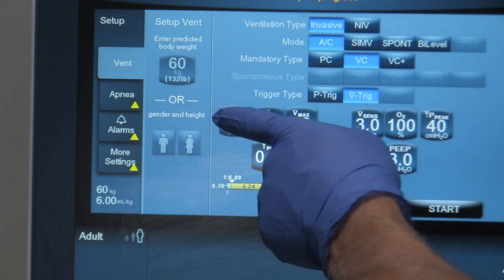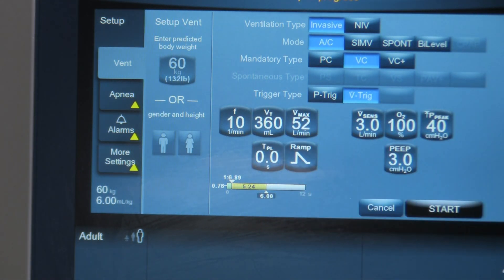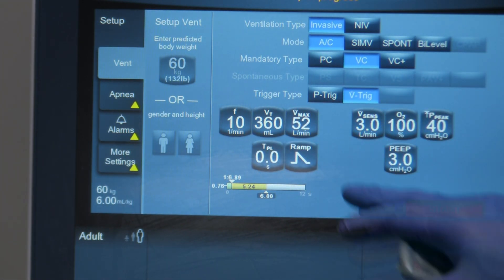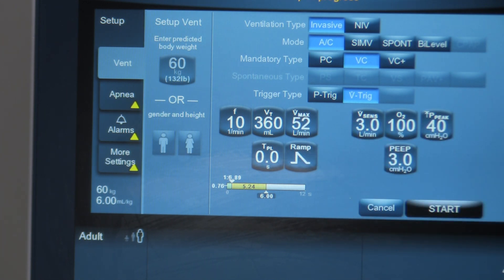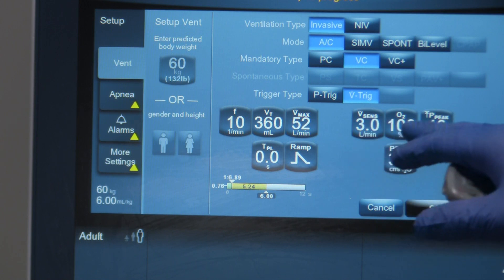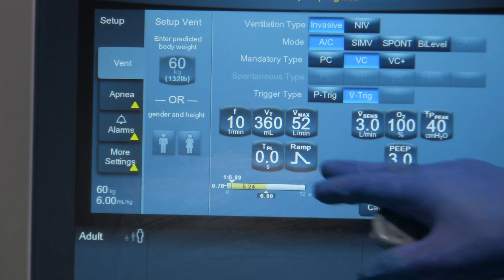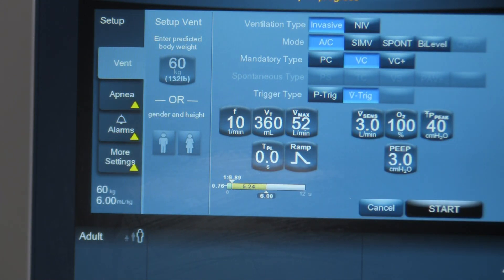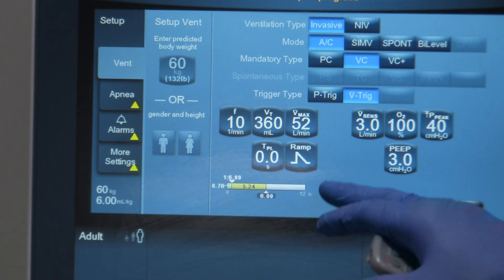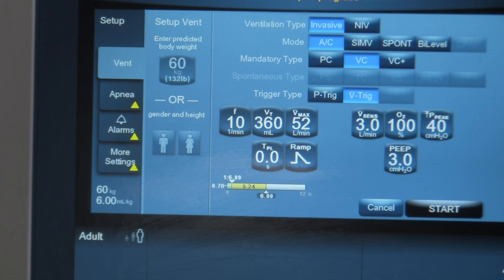The other settings on this level start with respiratory rate and tidal volume. The tidal volume that comes up is based on the ideal body weight programmed into the ventilator. Flow rate is also automatically chosen for defaults. Then we have sensitivity setting, FiO2, and high pressure alarm. On this level we've got inspiratory plateau time, the style of waveform for your flow waveform, and a PEEP setting. The bar at the bottom is a total cycle time indicator showing I-time, E-time, and IE ratio.